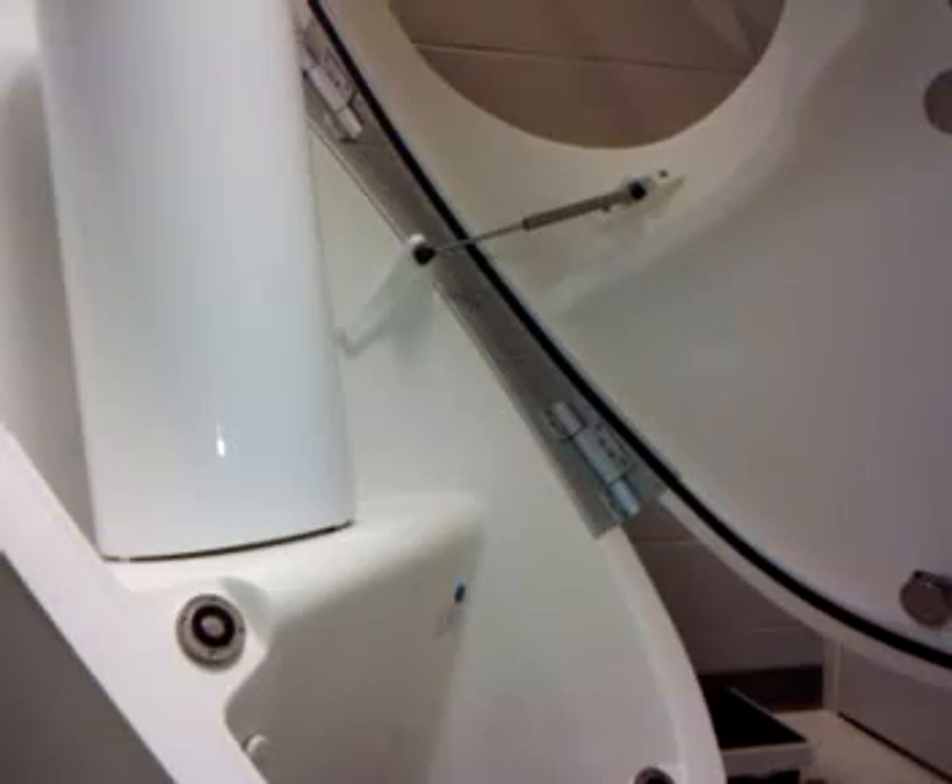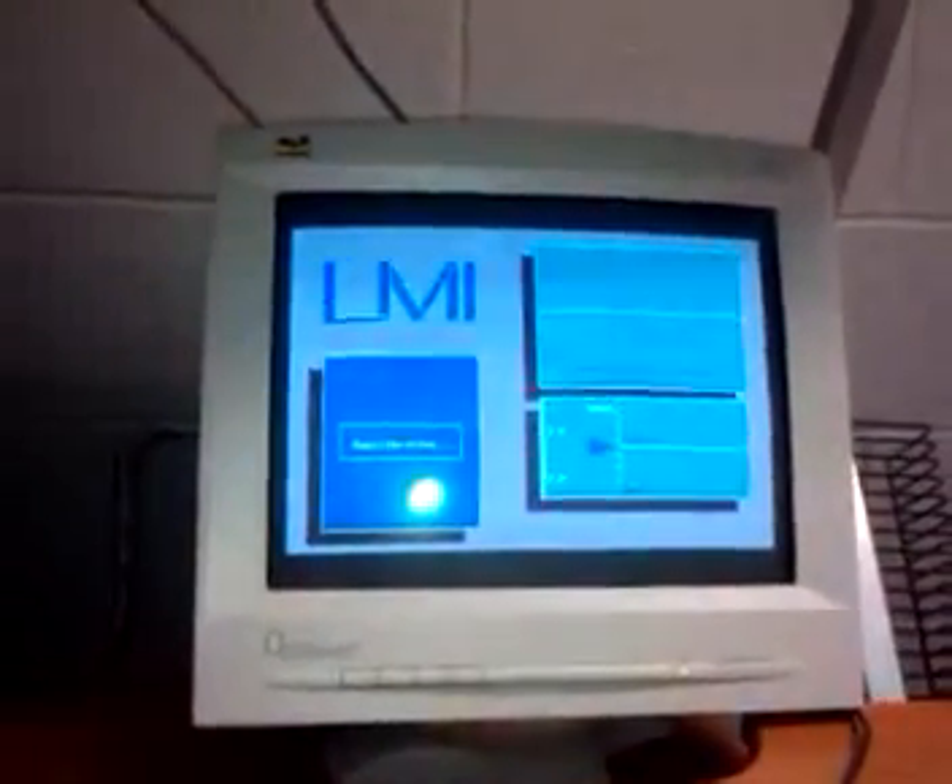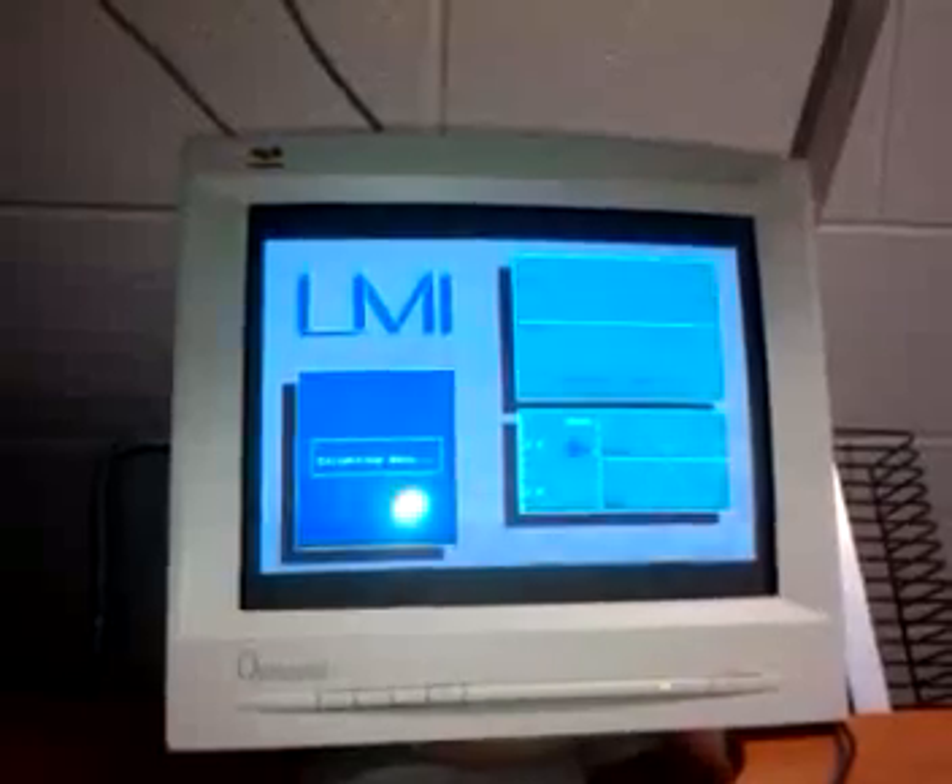After that, we're going to put the cylinder in the chamber. The cylinder volume is 49.54 liters. Press enter, then carefully close the door and press enter again. To finish calibrating, you'll do that four more times — five times total — opening the door, leaving the cylinder in, closing the door, and pressing enter. Afterwards, you should get a mean volume and a standard deviation.